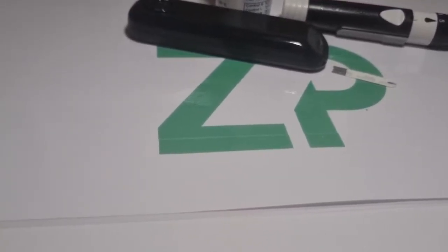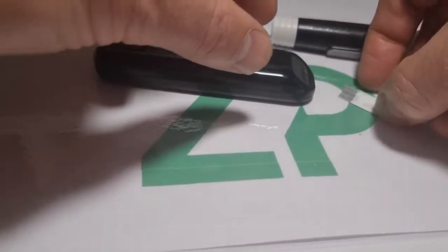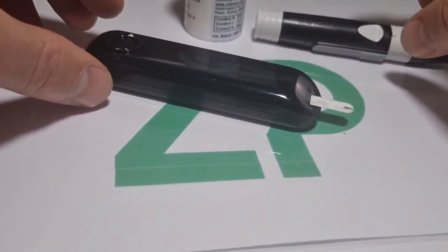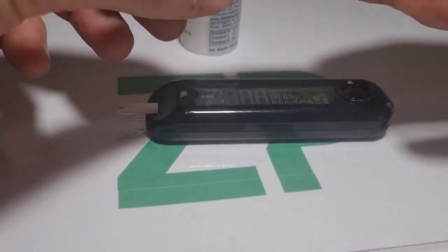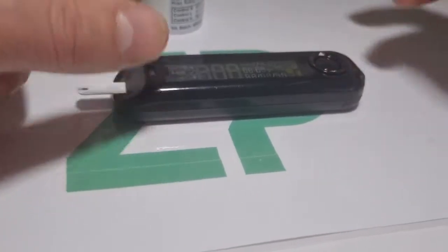What I'm going to do now is a demonstration of a glucose sensor. The question coming to us is: can you test samples by electrochemistry without having to do sample preparation? So what I've done is I've put the glucose sensor into the meter, and the meter's turned on.